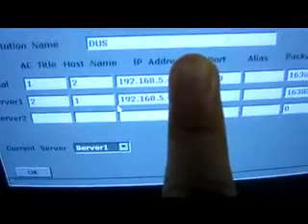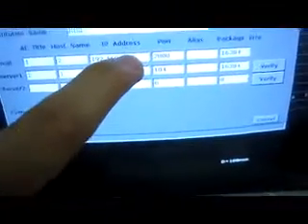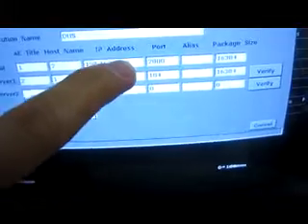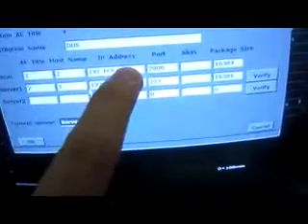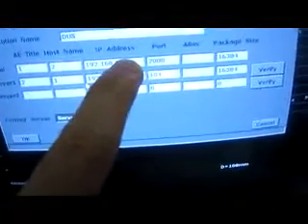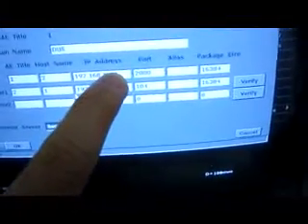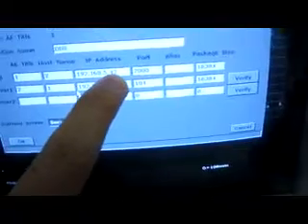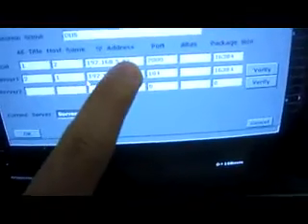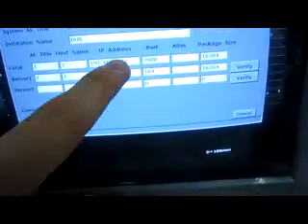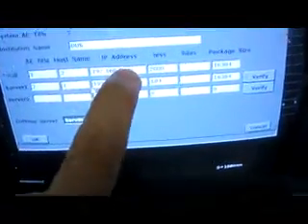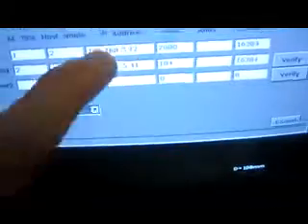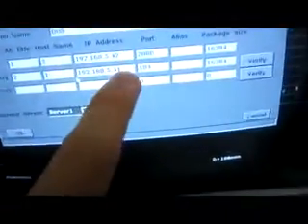And the last segment, the fourth segment, it is different. It doesn't matter what kind of number you set. Right now I put it 42 as the local and server is 41. We select the current server and click OK.